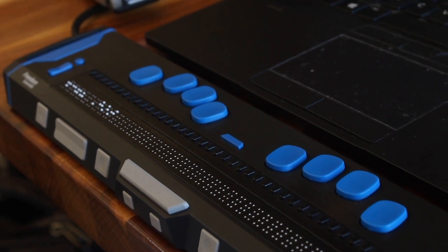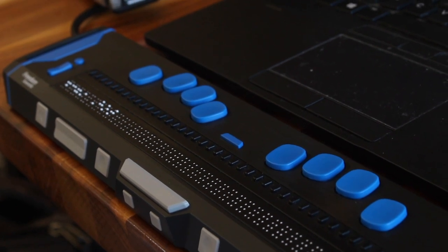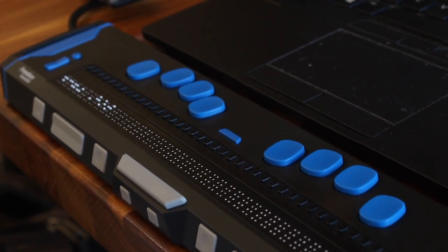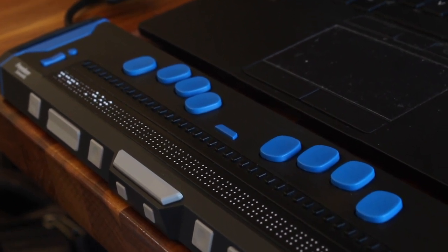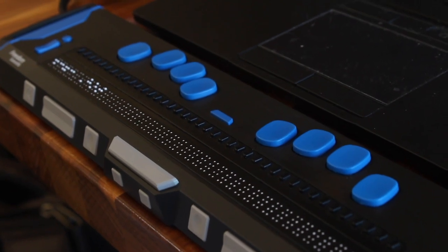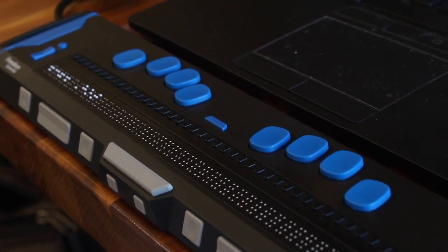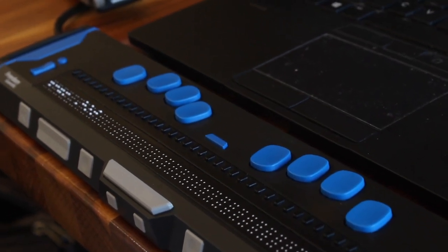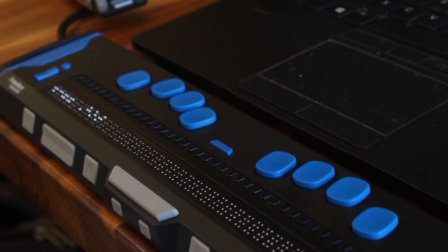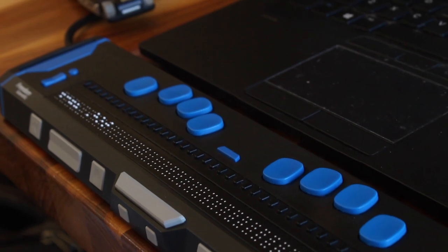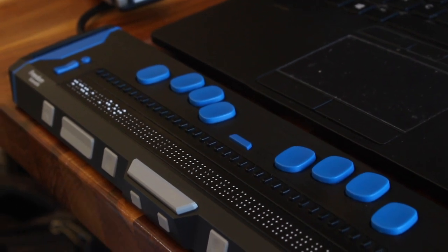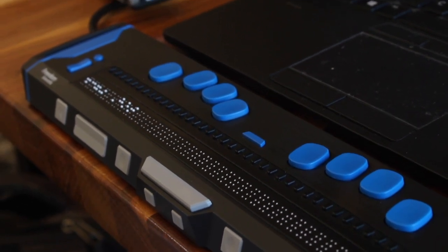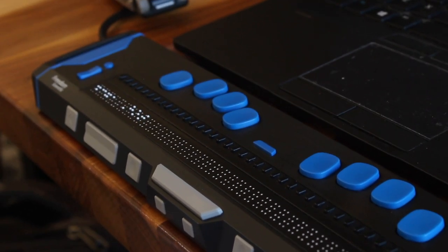So, what if I wish to enter a command such as insert T, the JAWS command, to make JAWS identify the document or the screen that's open, the window that's open, say title command.